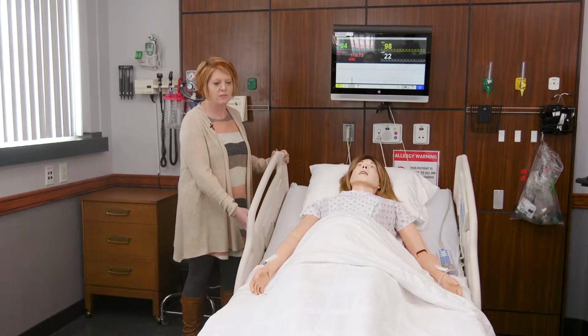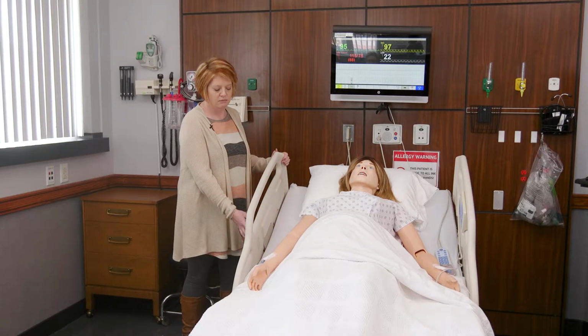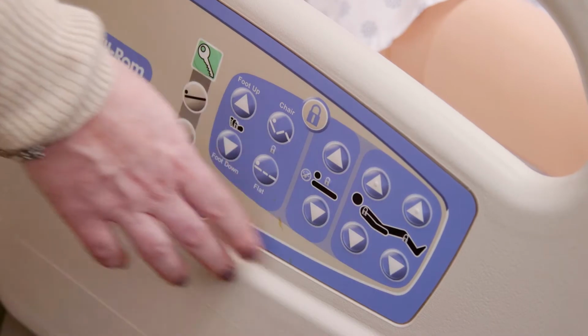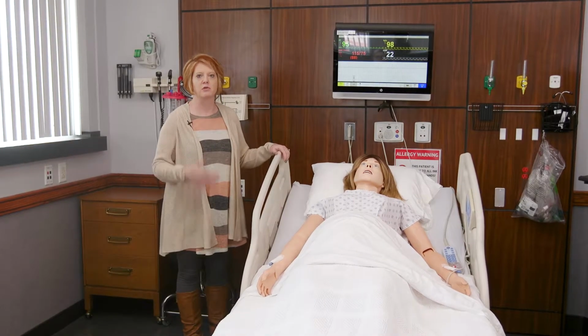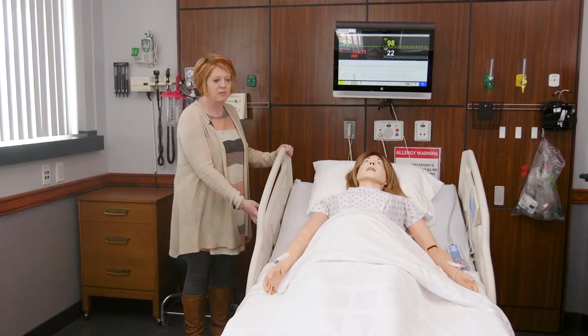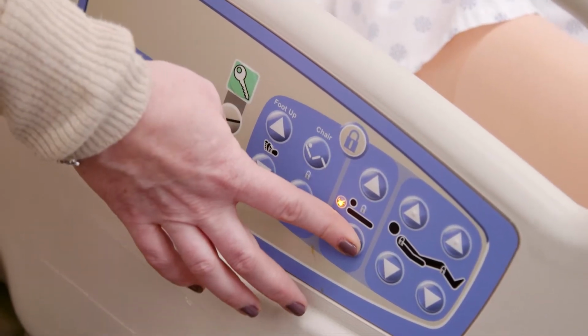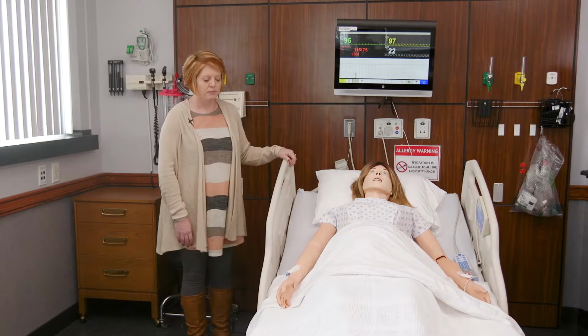If she needs her feet up, same theory applies. So button that her feet go up, and then same thing, the feet go down. And then if she needs the whole bed up, or you need to do a procedure in the room with your patient, then you can push a button and the whole bed comes up to a comfortable spot, and then you can push it back down when you're done with the procedure that you're performing at that time.